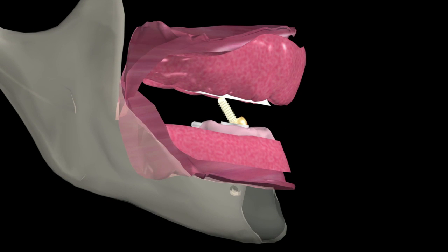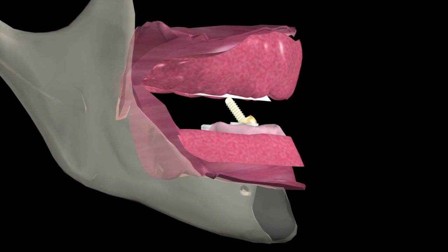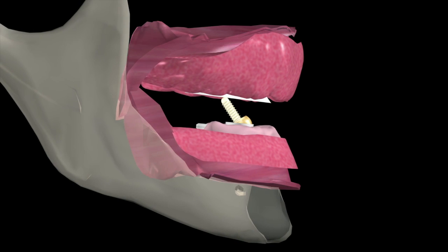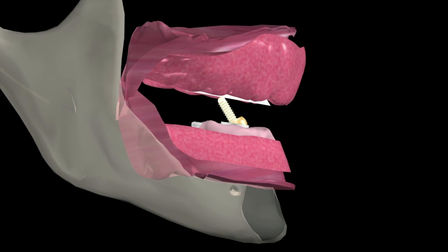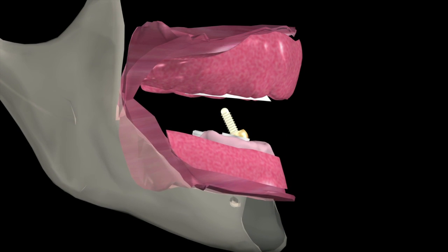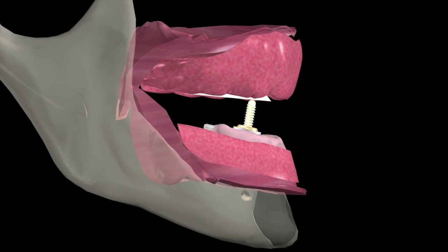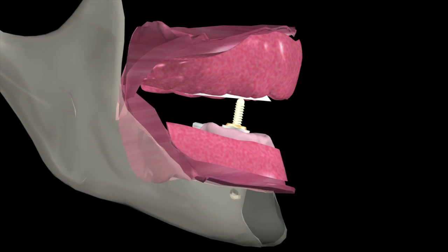For accuracy, this pin position should be evaluated for anterior-posterior movement, as well as lateral movement. Correction of the pin positioning in both planes allows for the pin and striking plate assembly to register a proper centric tracing, as well as fully seat the base plates.